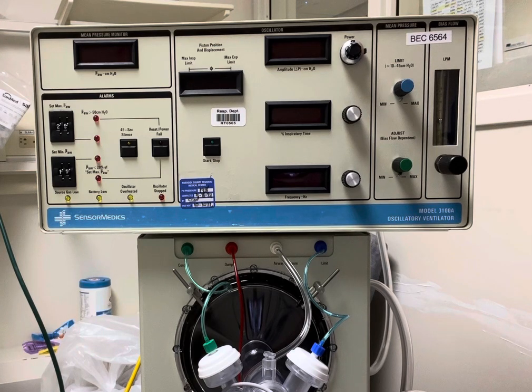There is a checklist up on top and a calibration checklist on the side. You're going to use the checklist on top first, which is the pre-patient hookup checklist, and then the calibration one after you've gone through the first one.